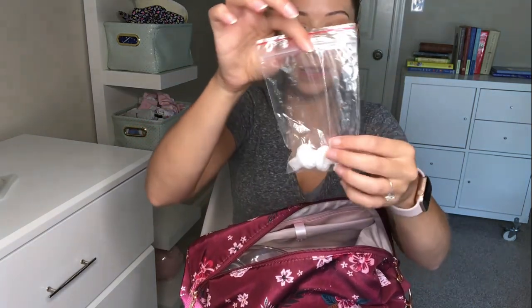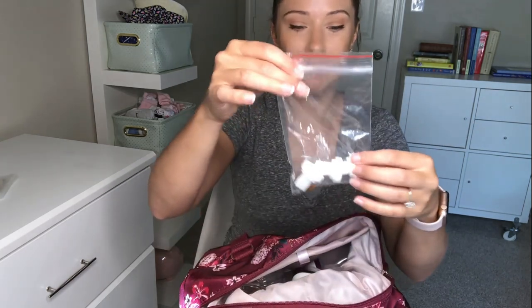Also, spare parts — little duck bill valves. It would be horrible to not have these because the pump is not functional without them. I like these little silicone ones — they're super easy, just one piece, you pop them on and clean them really easily.